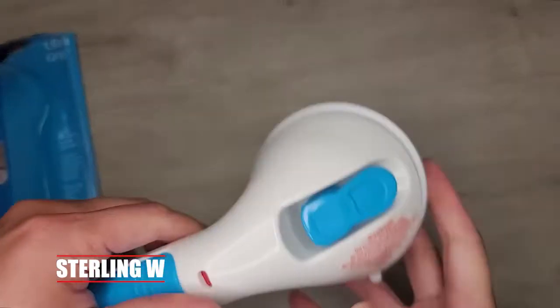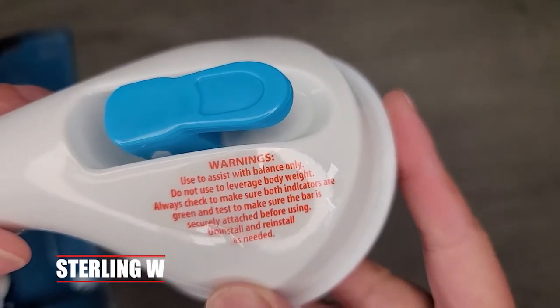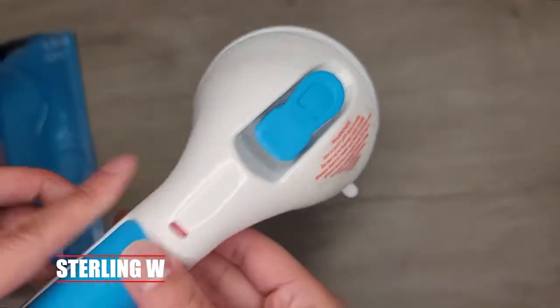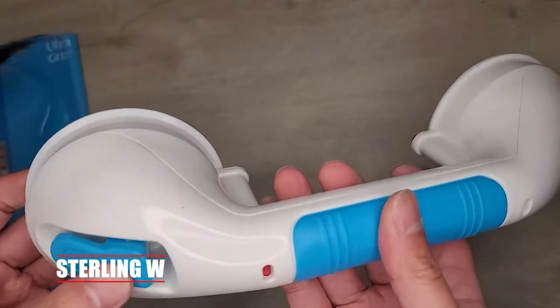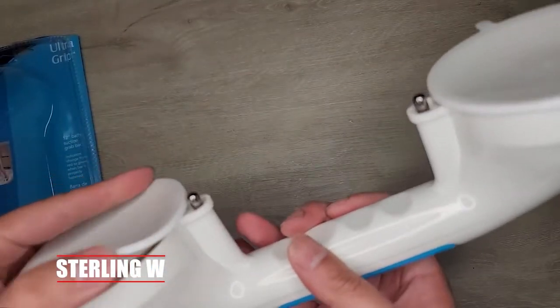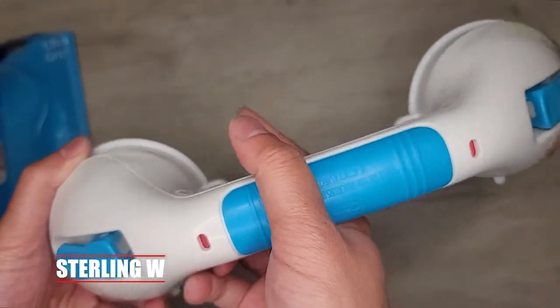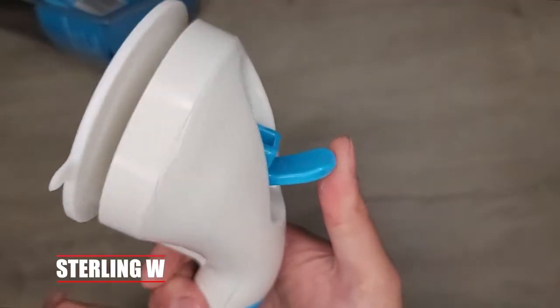Taking a quick look at it, it has two soft big suction cups. It has a lever on there. It also says a warning to only use this as a grip for balance and not for your full body weight. The two levers basically suck in those suction cups, and there's also a little pin that pushes in and changes the color of the indicator — when it's against the wall it's green, and if it's not, it's red.